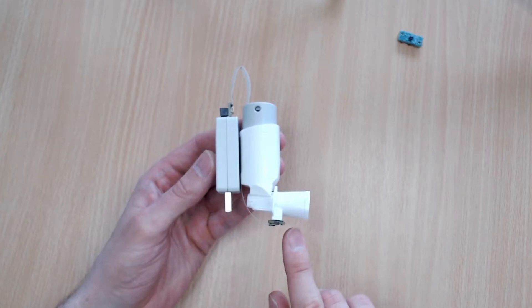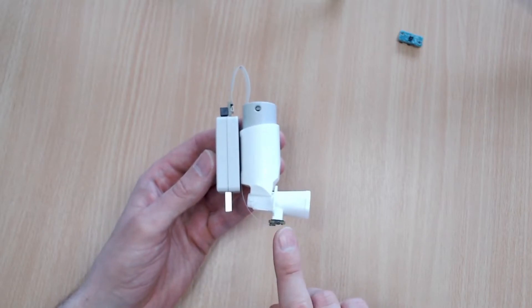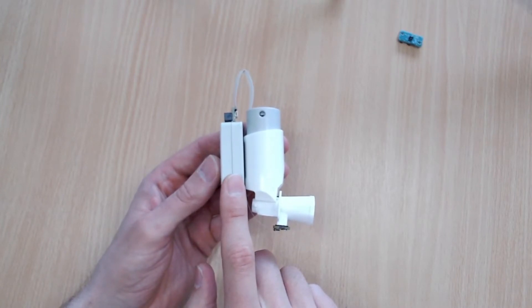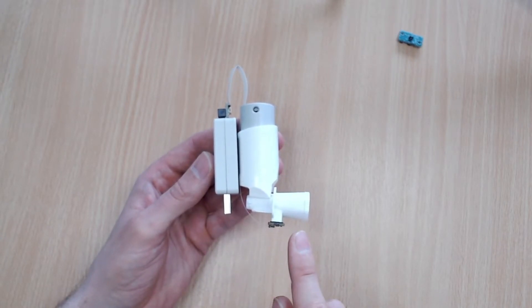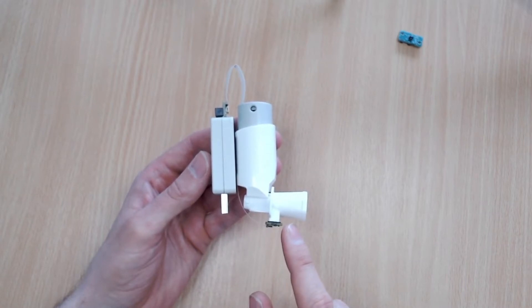But because this is a demonstration and I have to retrofit this into an existing training inhaler, I've got the FLS110 connected by a flexible ribbon cable to the I squared C to USB adapter that we use with our evaluation kit. This will allow me to measure the signal from the FLS110 using the GUI software on my laptop and show you what the FLS110 is able to measure while I use this inhaler.